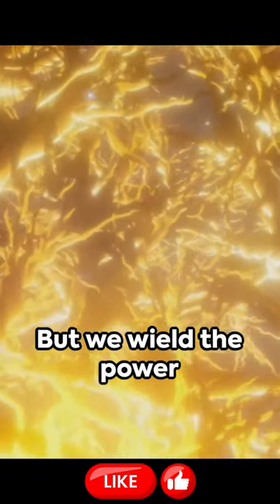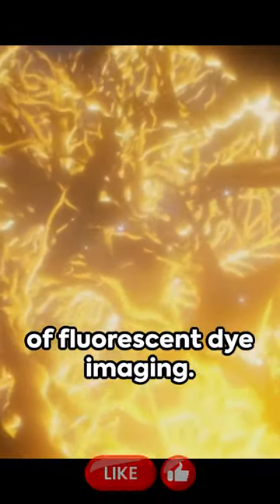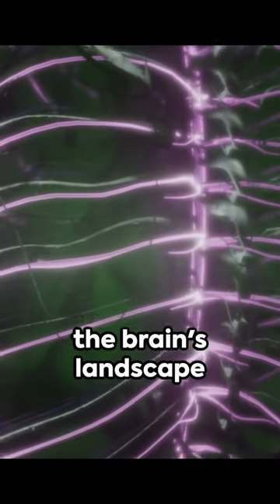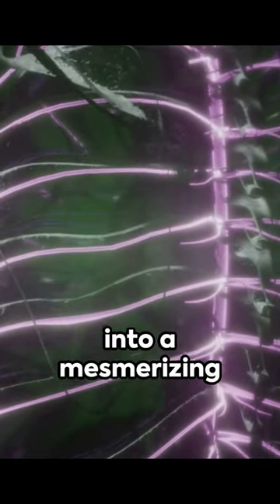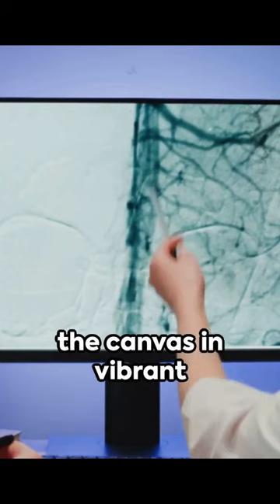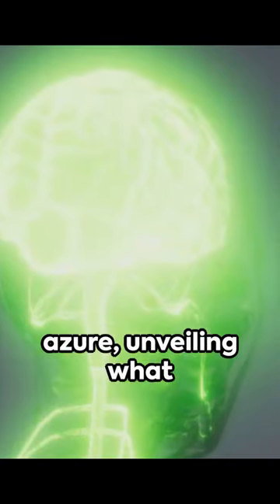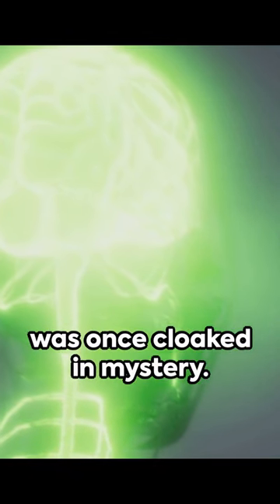But we wield the power of fluorescent dye imaging. This groundbreaking technology transforms the brain's landscape into a mesmerizing light show, painting the canvas in vibrant hues of crimson and azure, unveiling what was once cloaked in mystery.